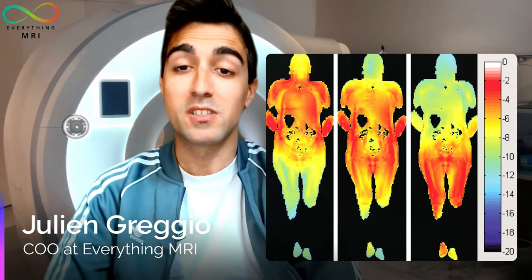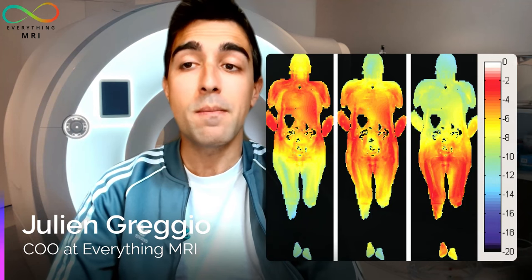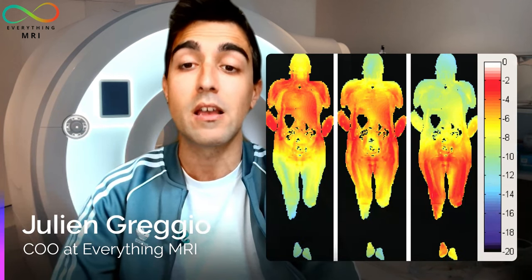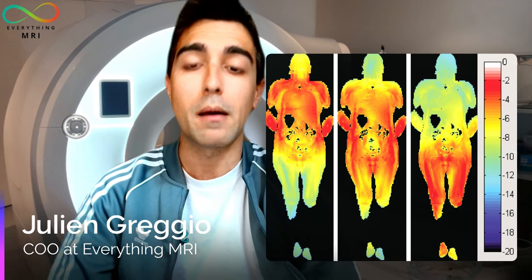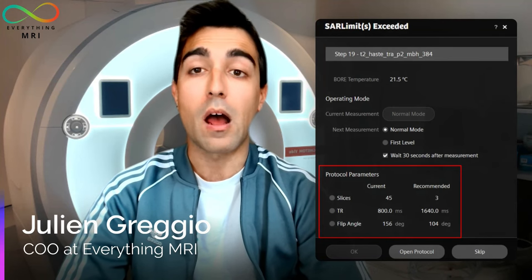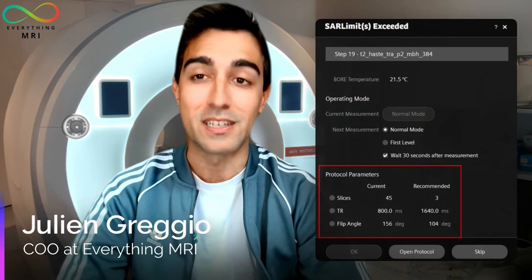We know that MRI involves the transfer of energy from our radio frequency pulses to the protons inside the human body, and in particular to the anatomical area that we want to image. Much of this energy is absorbed by the patient's body tissues and this can cause potential heating, which might have detrimental consequences if not controlled. To measure the amount of power deposited by a radio frequency field in a certain mass of tissue, we rely on the SAR — acronym for Specific Absorption Rate. The MR machine uses the SAR to warn the user about a potential risk of heating, suggesting steps to reduce the amount of energy deposited in the patient's body tissues.